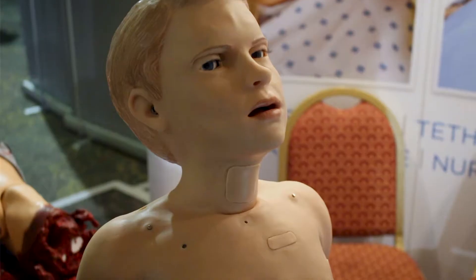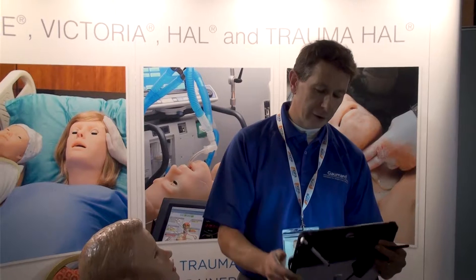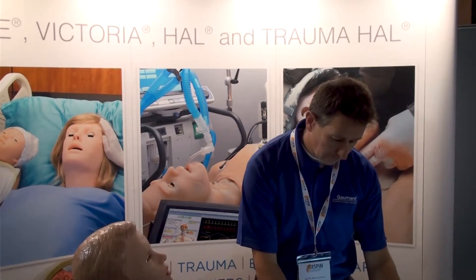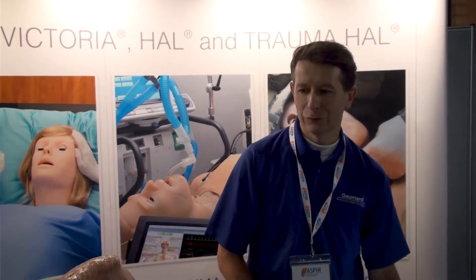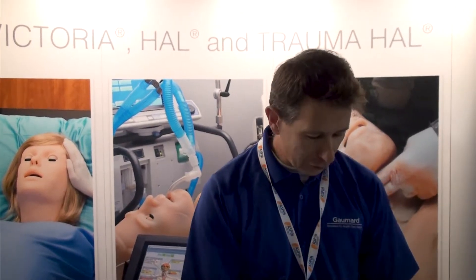As you can see, he's got his mouth moving and is able to do speech — 'It really, really hurts. Can't move it.' And as you can see, his lips move as he talks.